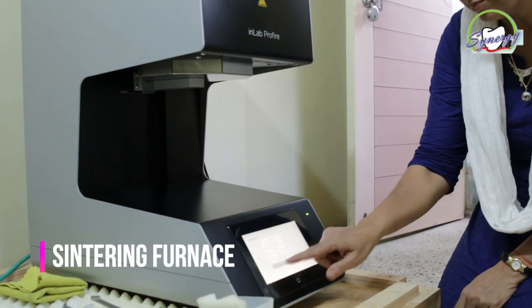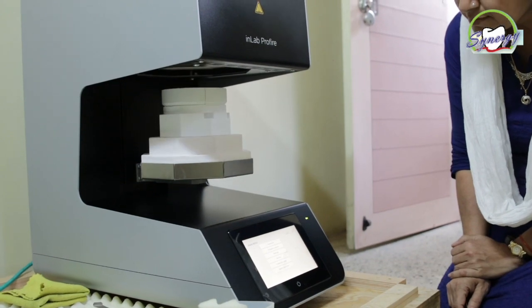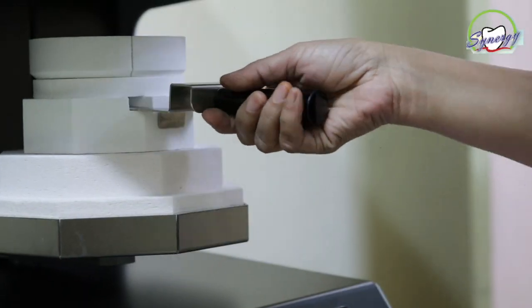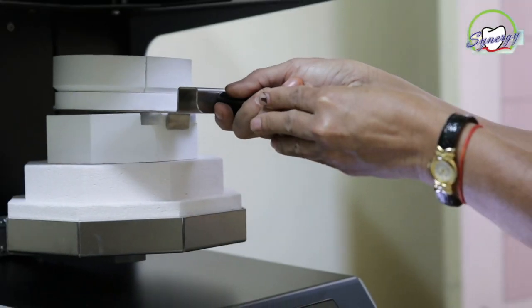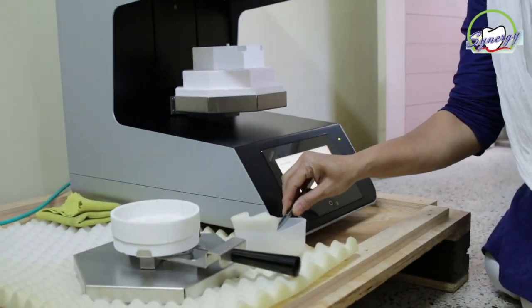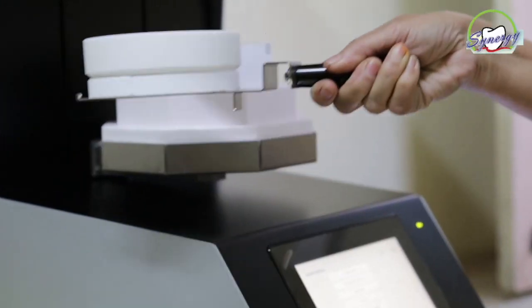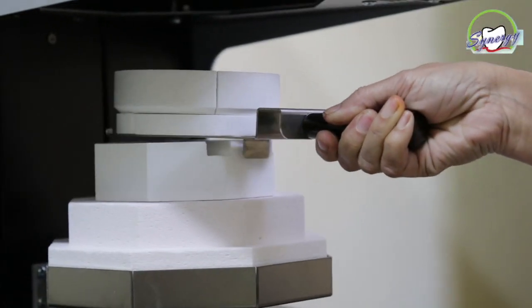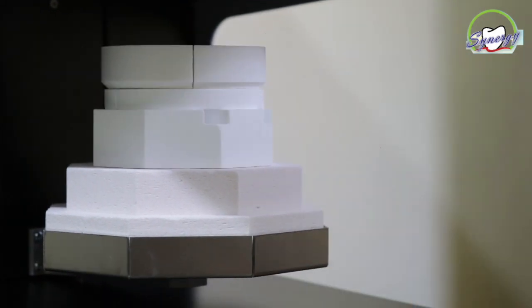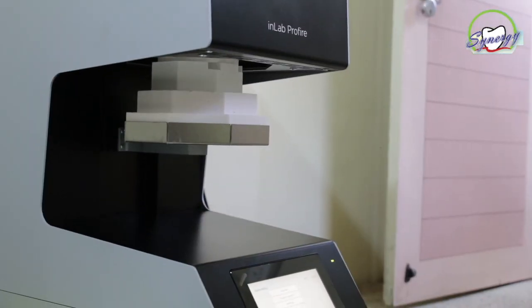The In-Lab Profire is the latest sintering machine, which allows sintering of zirconium oxide and metals in a single furnace. It has an integrated color touch display and pre-installed programs, making it very user-friendly.